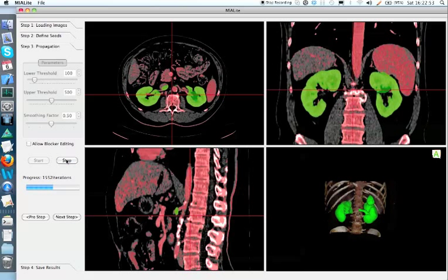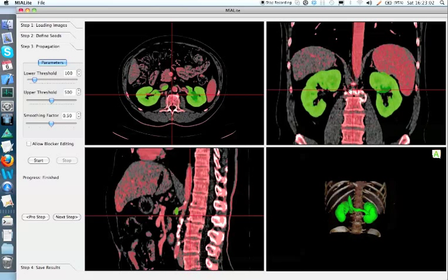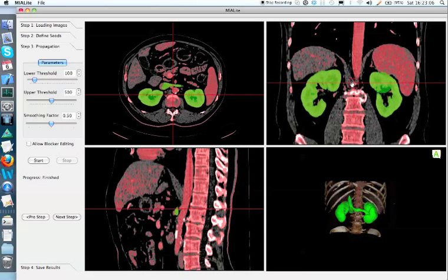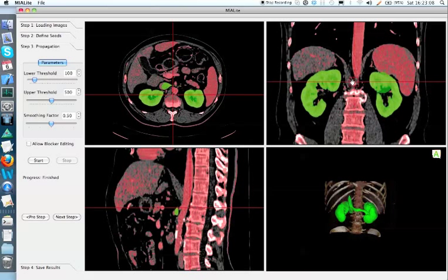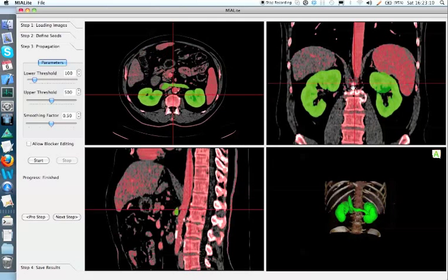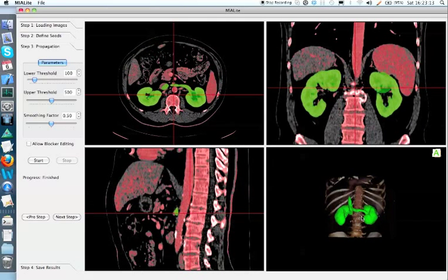This might help in some cases, but in many cases there might be no optimal threshold. Like in this case, the renal vein has almost the same CT value as the kidney, so you cannot cut the renal vein away by using a threshold.